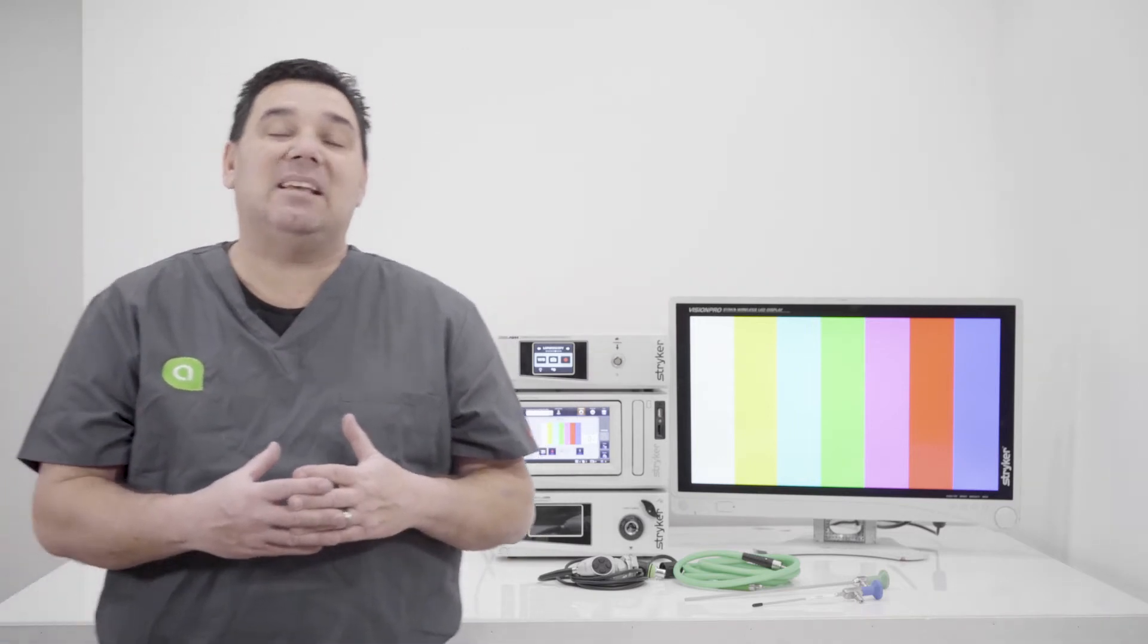Basically, it's a device that allows you to take pictures, burn video, and then it's also a pass-through to what the final component is, is a display. So again, to break it down and keep it simple, you have a source, you have devices, and you have displays.